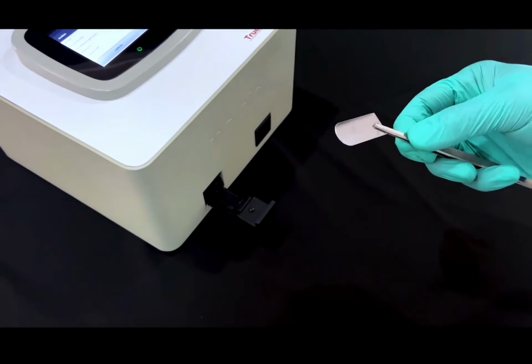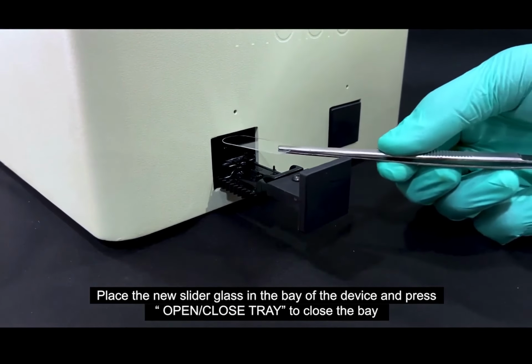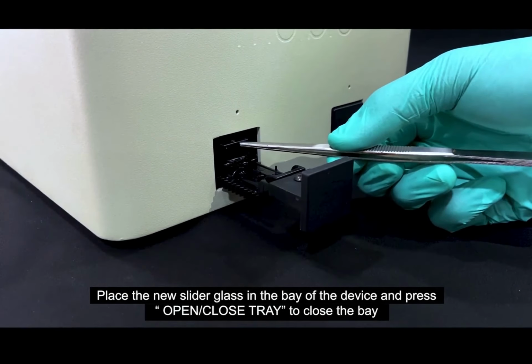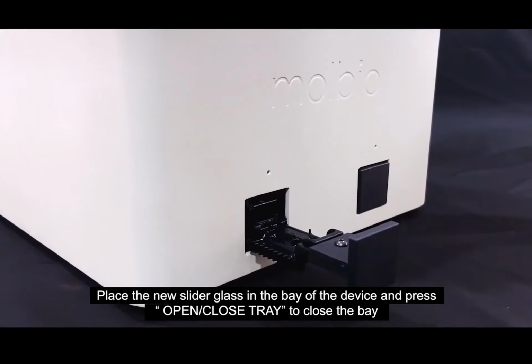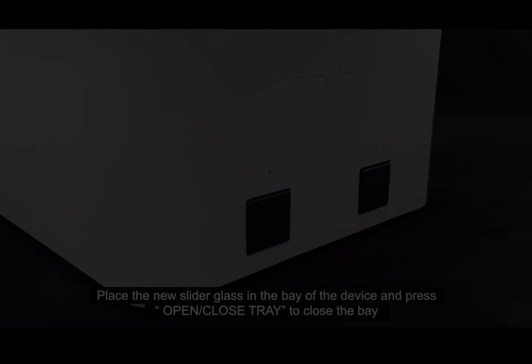Now you can insert. There is a groove, it will just go and sit there. There is no clicking or anything, you just have to place it. And once you have placed it properly, just press the close tray option. And now your machine is ready for use.